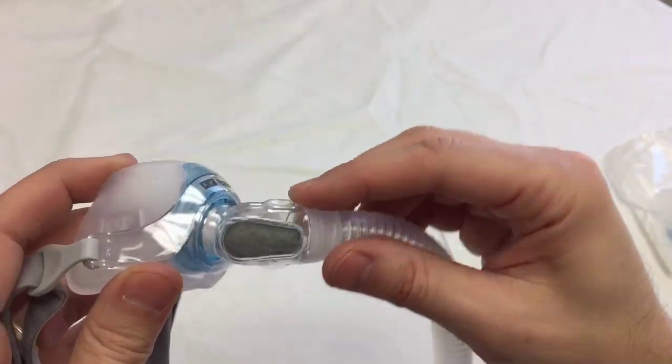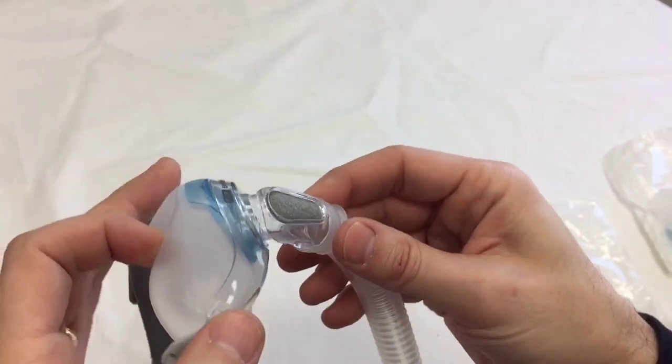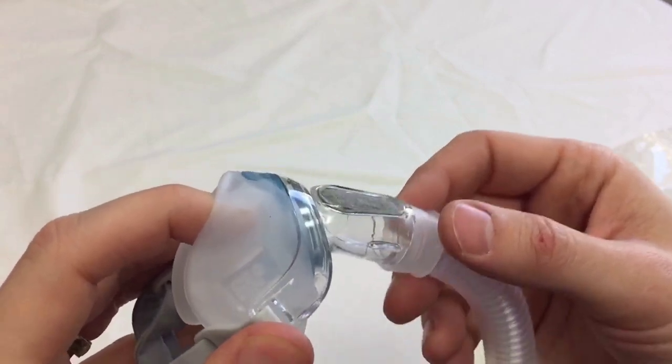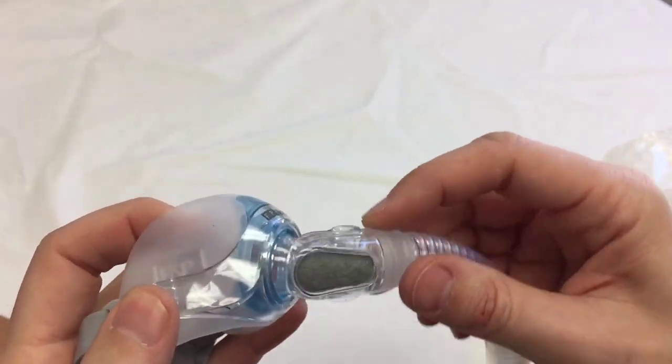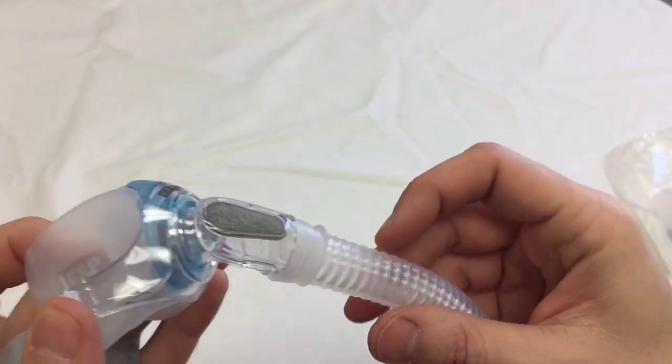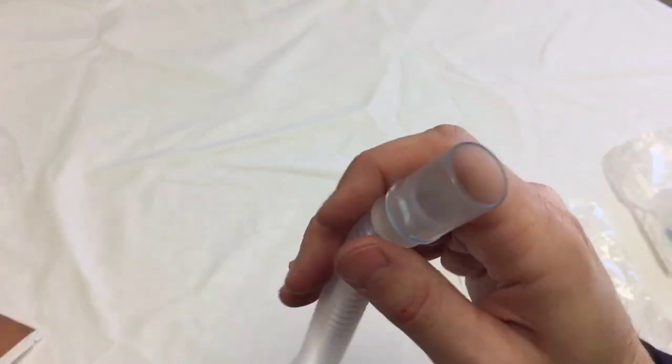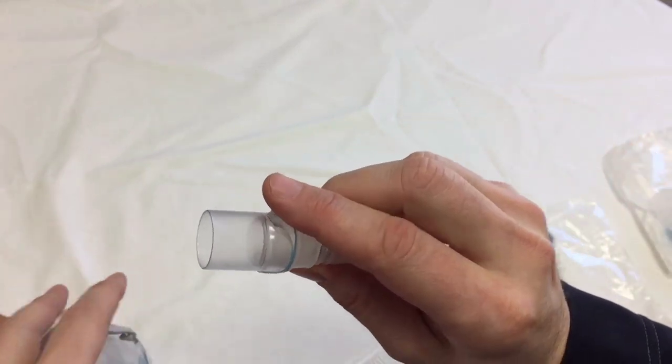You can see the split back style headgear. Here we can see the traditional Fisher & Paykel 360 swivel, plus even more. So it gives you a great margin of error in case you move around in bed a lot at night. It won't pull off your face.